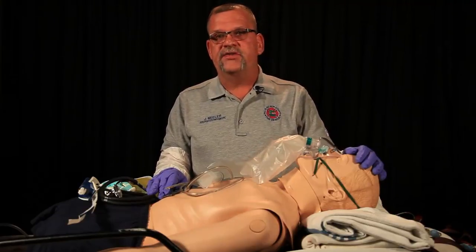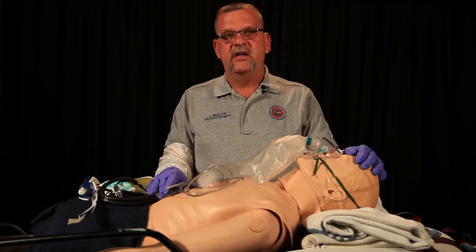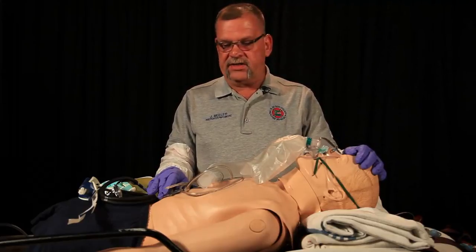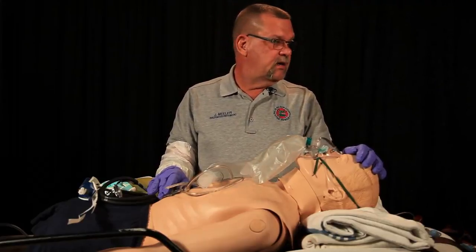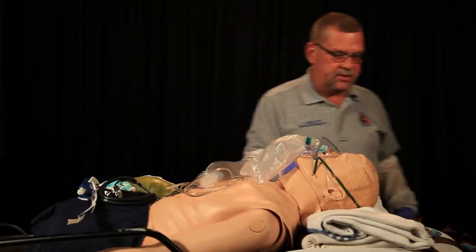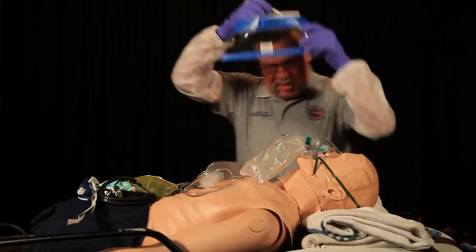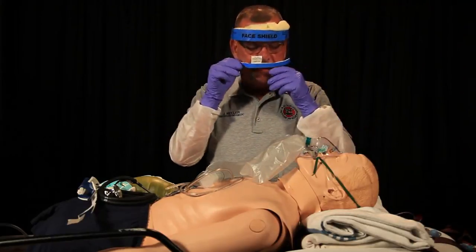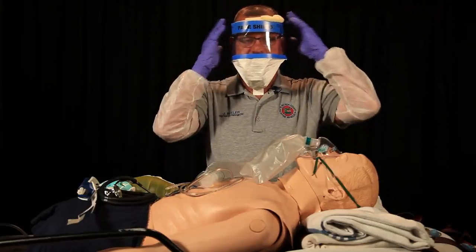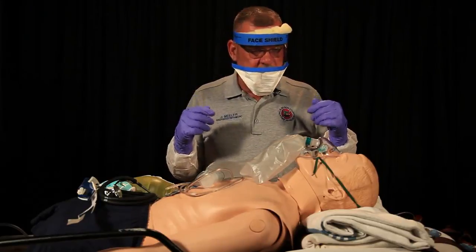The contraindications for the King airway are patients who may have ingested caustic substances, and patients who have known esophageal disease and/or esophageal varices. Anytime we are operating with an airway, we want to be in full body substance isolation to include full facial protection. Now, for the purposes of this video, I'm going to remove the full facial protection so that you can still hear me talking during the video.